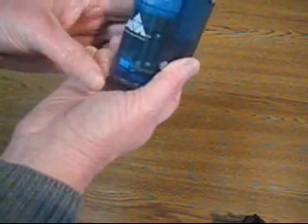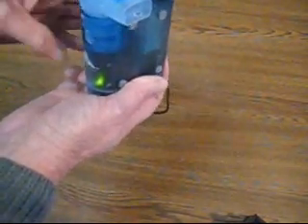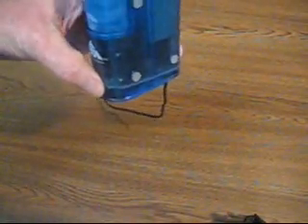It's just simply placing your thumb over the switch, push lightly, and the machine turns on. You'll notice the green light indicating the machine is on. You can see the medication being dispensed. Again, just grab it, squeeze, and the machine turns off.